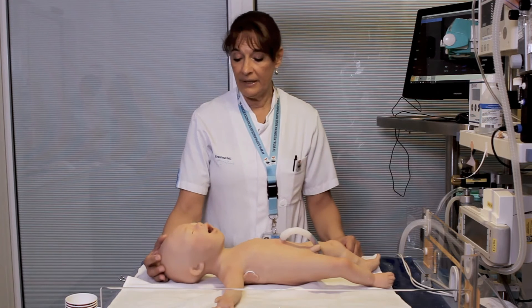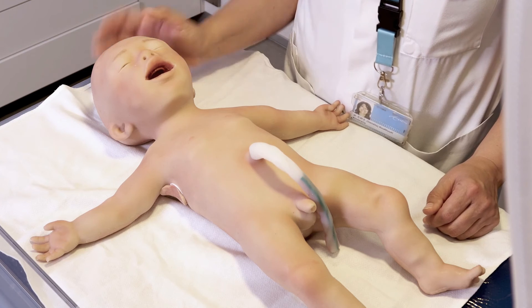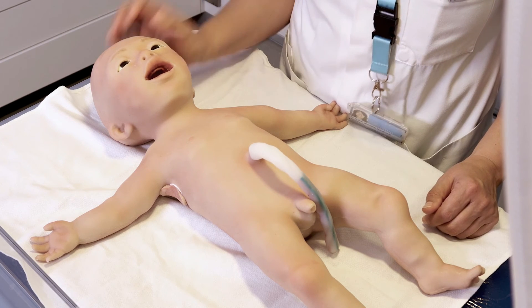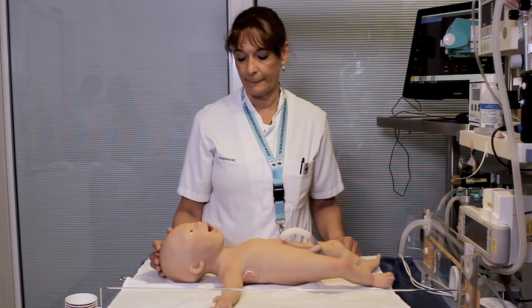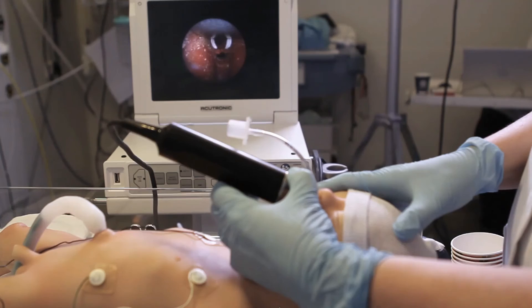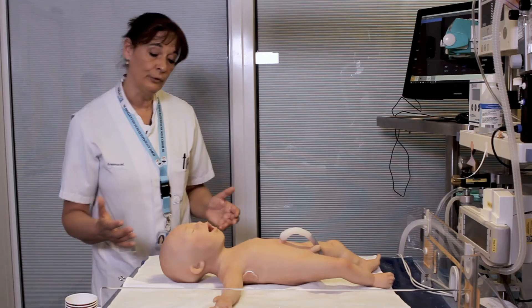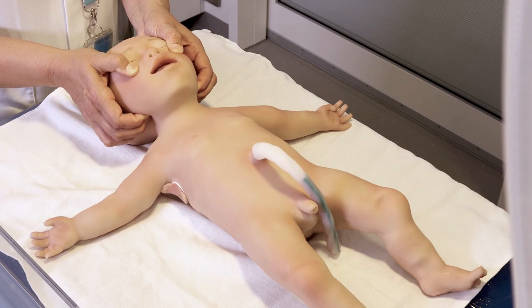The baby's eyes and pupils can respond to light and the eyelids can move too. When performing neurological controls, you can open the eyes, shine a light, and see the pupil dilating or getting smaller. Another feature is that the baby can be intubated nasally, as neonatologists prefer, and also orally. A very nice feature for alternative airway management is that the jaw thrust is very easy to perform.